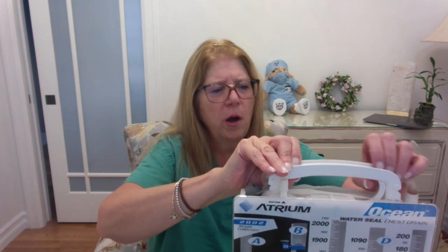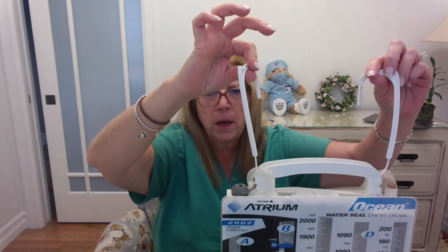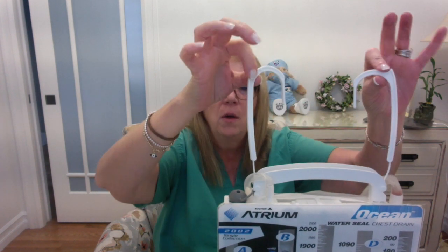So these chest tubes come with some handles, okay? And these handles are to be used for hanging the chest tube at the bottom of the bed, or the side of the bed, to make sure that this chest drainage unit always stays below the level of the patient's chest. We never want the chest tube above the level of the chest, because then we're going to get backflow of fluid into the chest. So we use this for keeping the chest tube close to the patient and attached to the bed below the level of the chest.